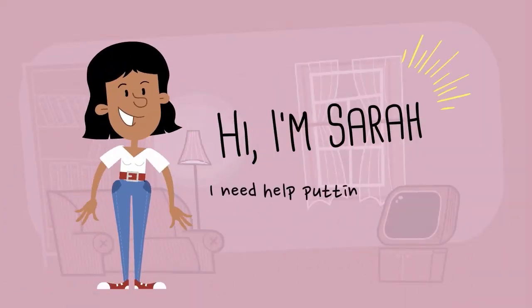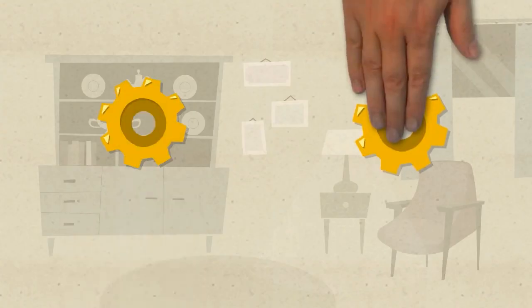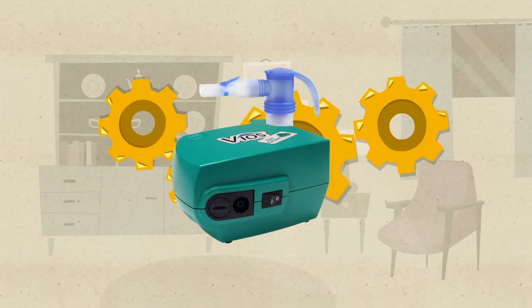Hi, I'm Sarah and I need to put together my new nebulizer. I want to make sure I have all the parts and get it working correctly so I can get the best results for my medication treatments.